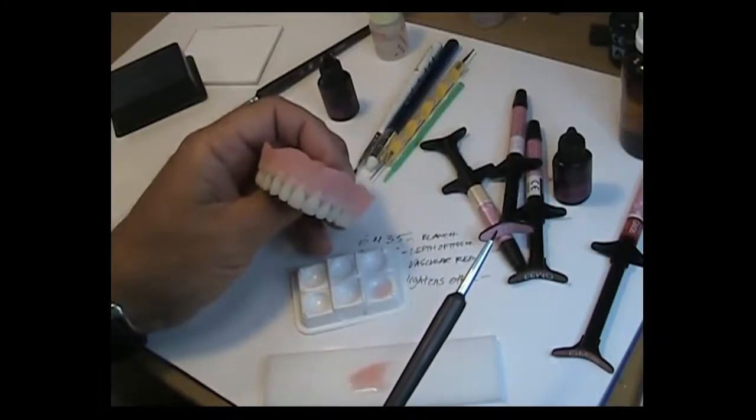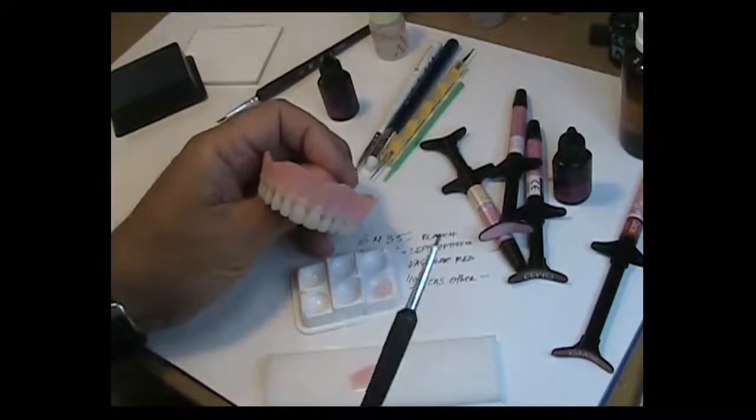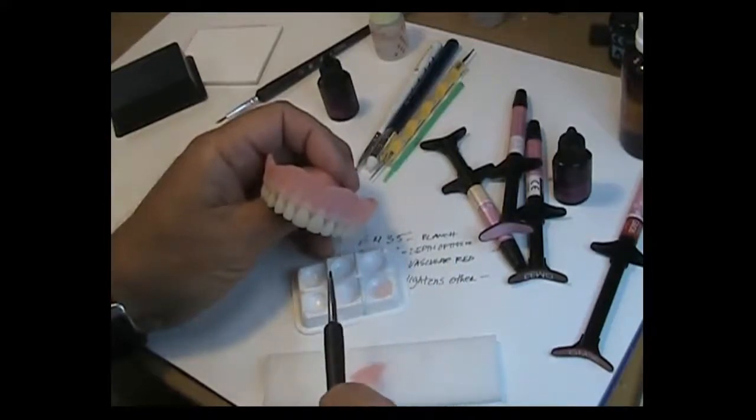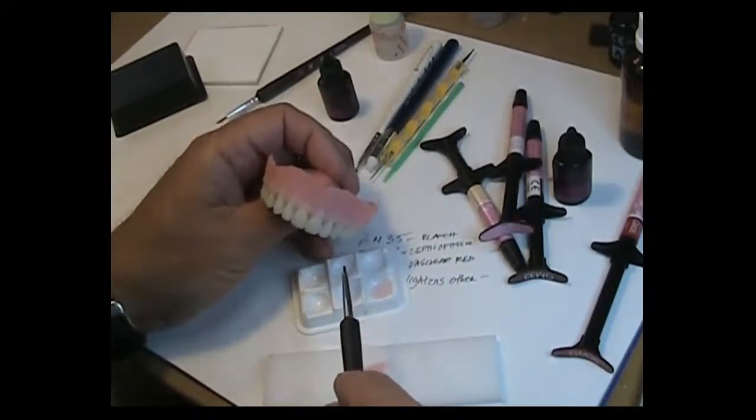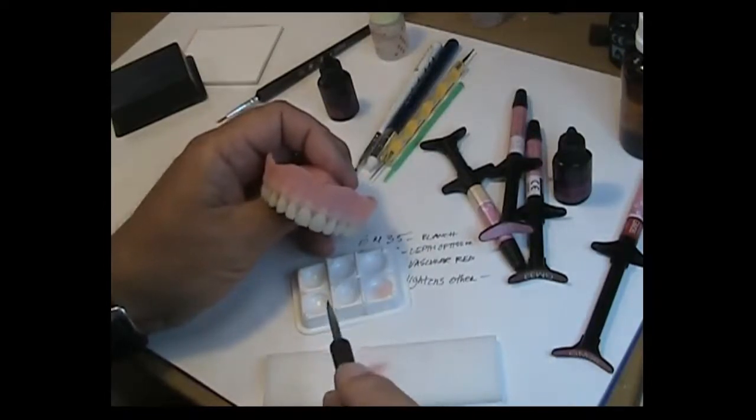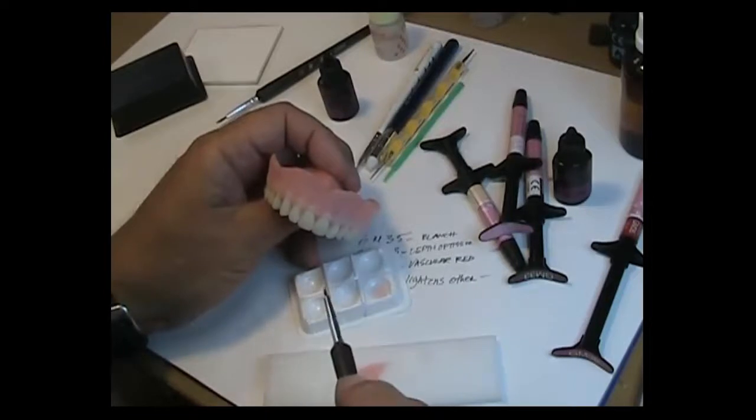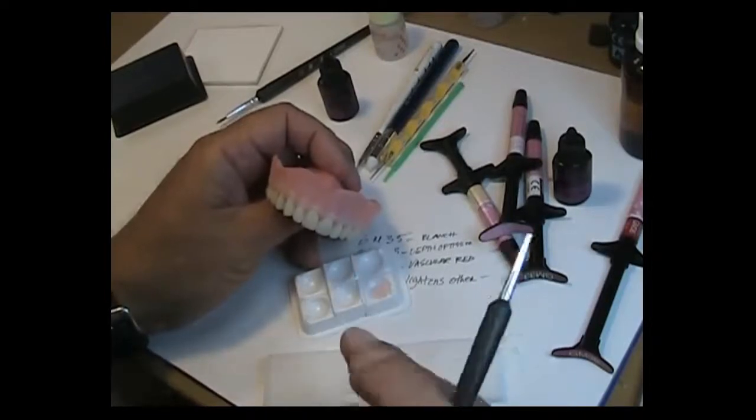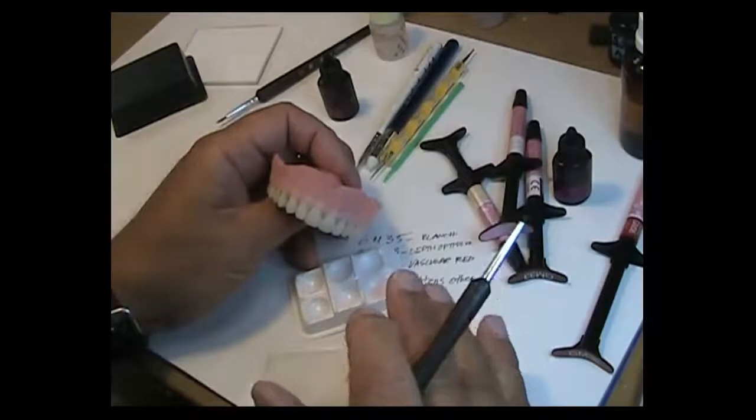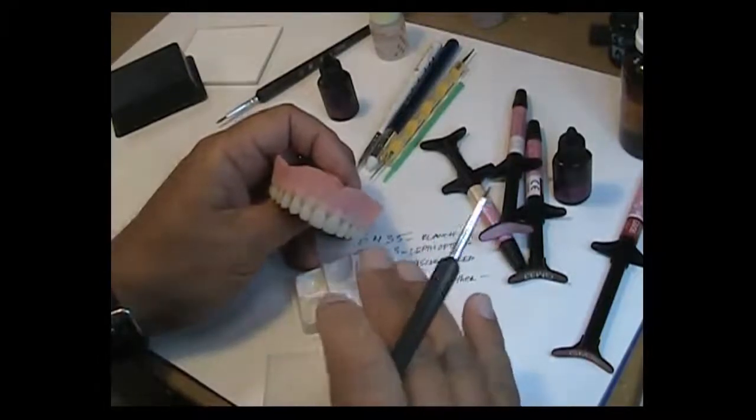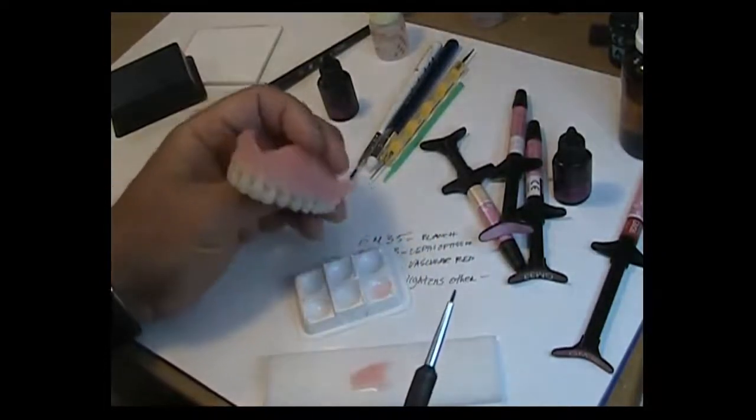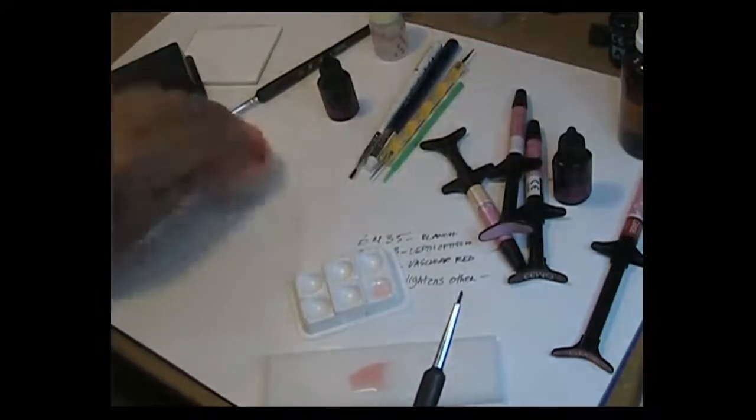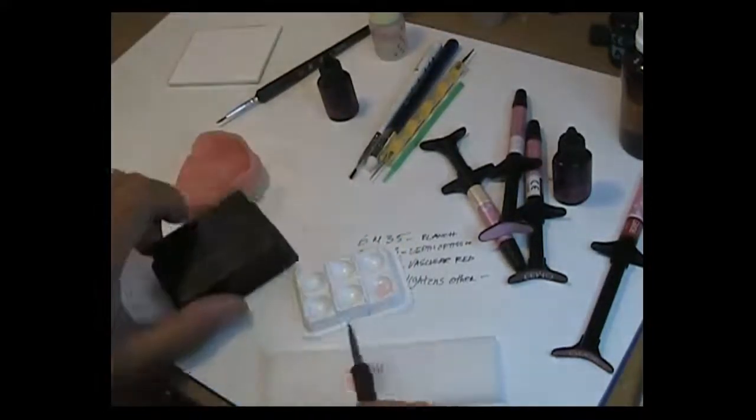If you find there's a tackiness on the surface, but you got to coat it with an air barrier in order for the product to cure underneath. You cannot leave it uncoated with air barrier for your final cure and expect it to cure the correct way because it leaves an inhibition layer. The air barrier actually sets up so that you can wash off the inhibition layer which will be sticking to the air barrier material. All right, so you got that going, you got the cover, you've got the well.